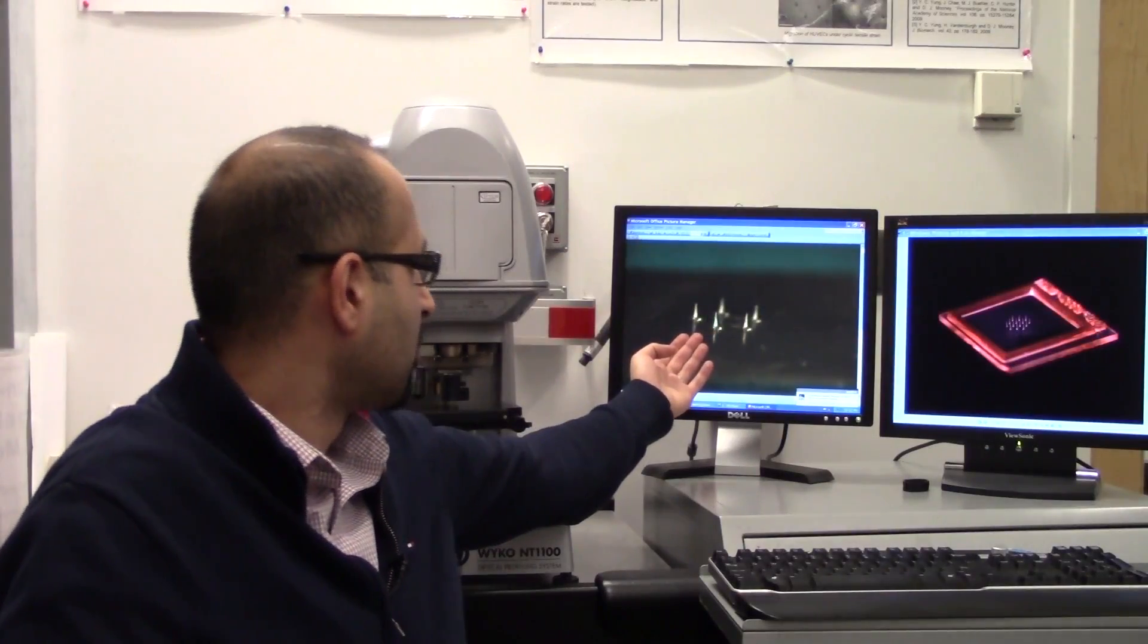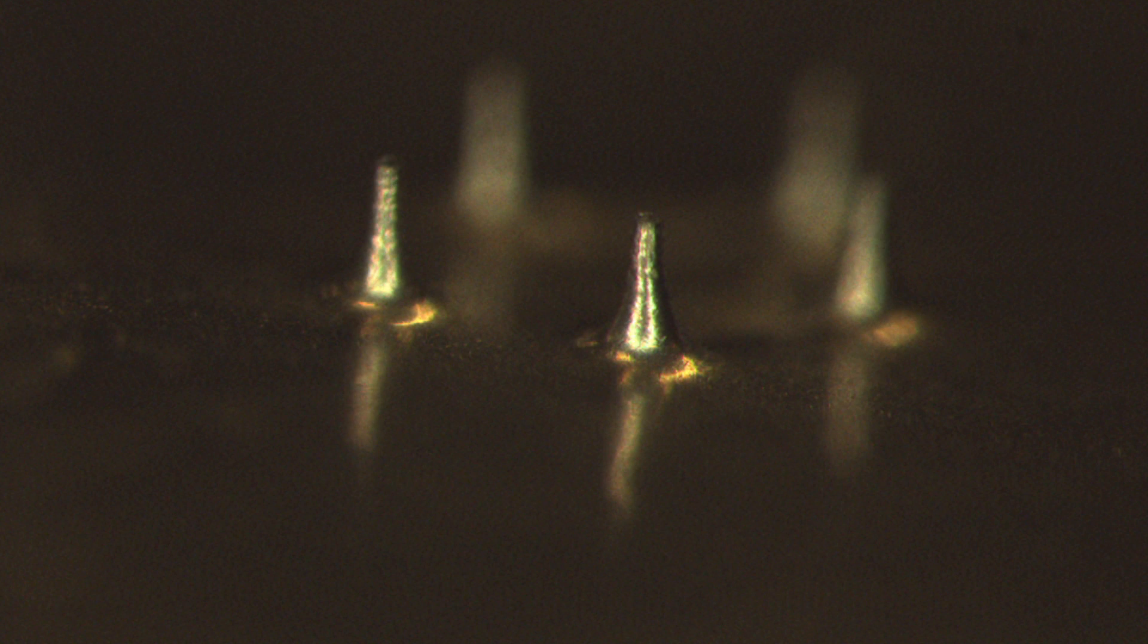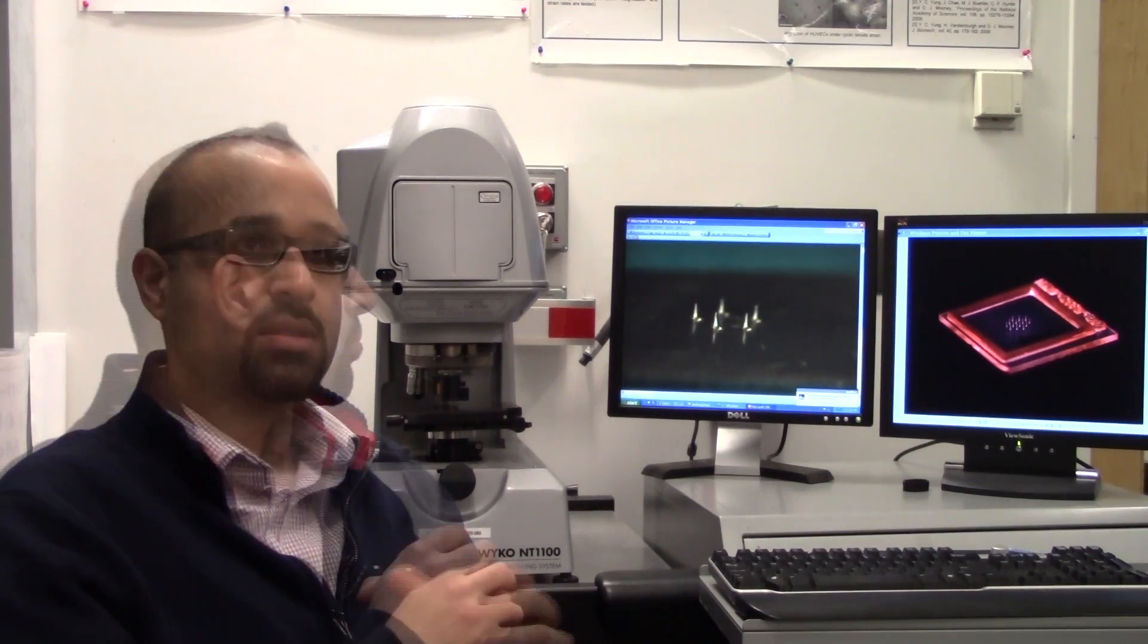This is an image of a micro-needle array. So this is essentially a cone-shaped structure, not so long, typically less than one millimeter. So the idea is we want to inject the drug into the epidermis. In this whole procedure we're not actually touching the nerves in the dermis. So that's why the procedure is painless.